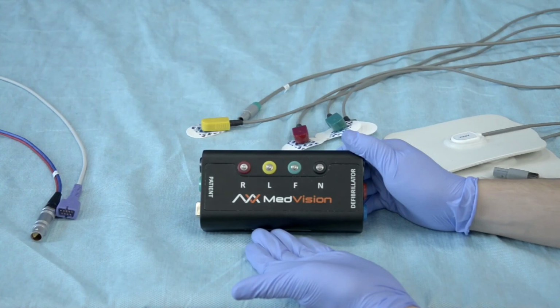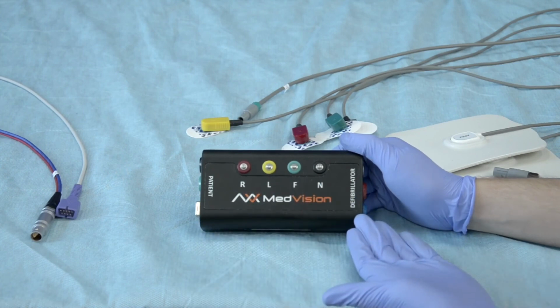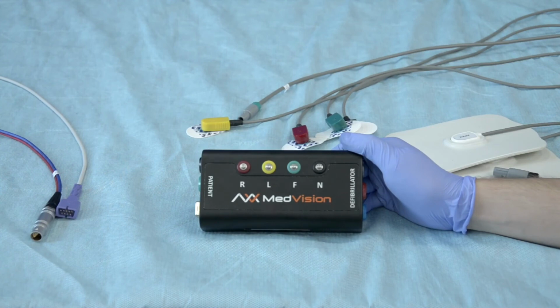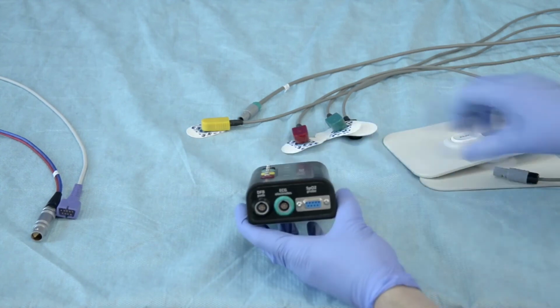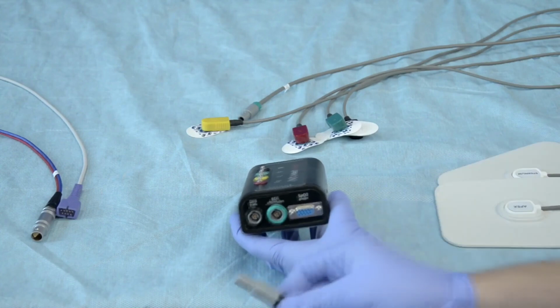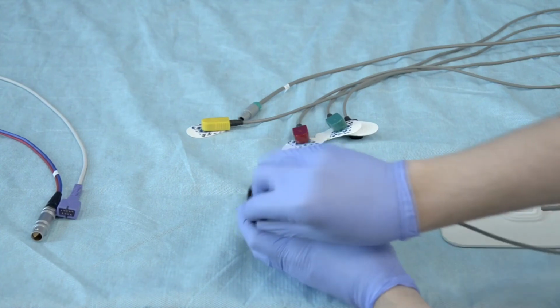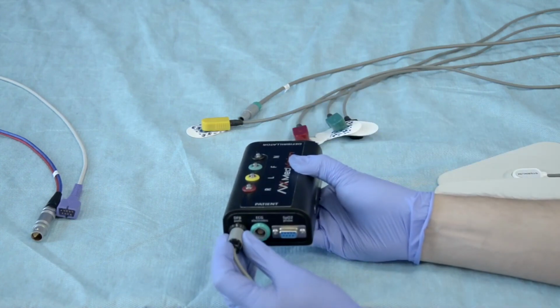A closer look at the adapter box. It has 2 sides, one for patient, one for defib connections, and on the faceplate there are connections for real ECG electrodes. Flipping it over to the side indicated as patient, here we have the defibrillator pads connector. Align the little plastic rail with the indentation on the port. Pull gently to remove.